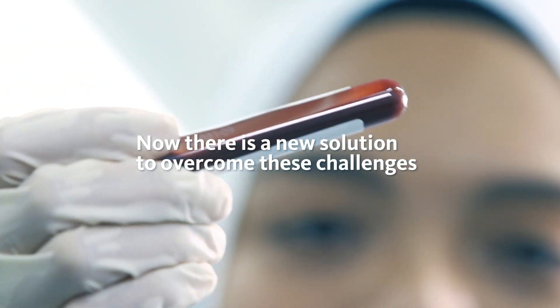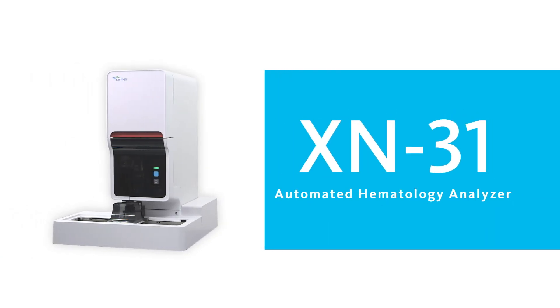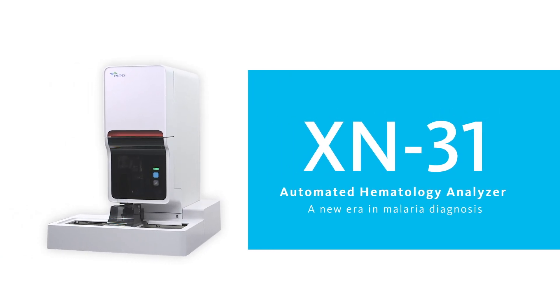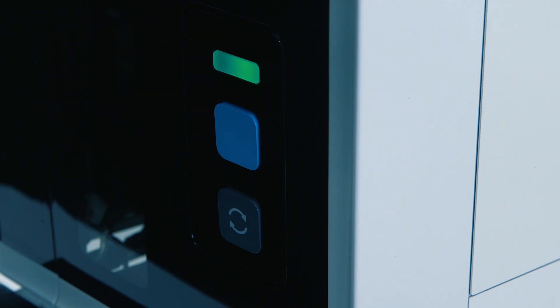Now, there is a new solution to overcome these challenges. The XN31, a uniquely innovative automated hematology analyzer, is here to change the conventional approach to malaria testing.